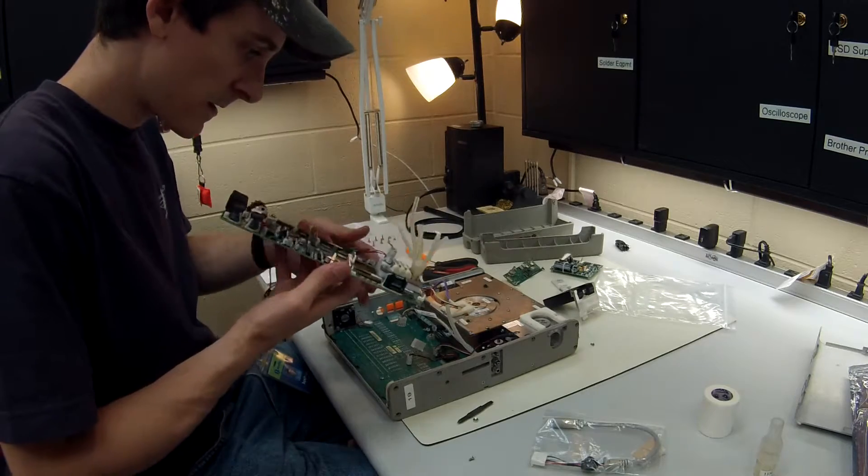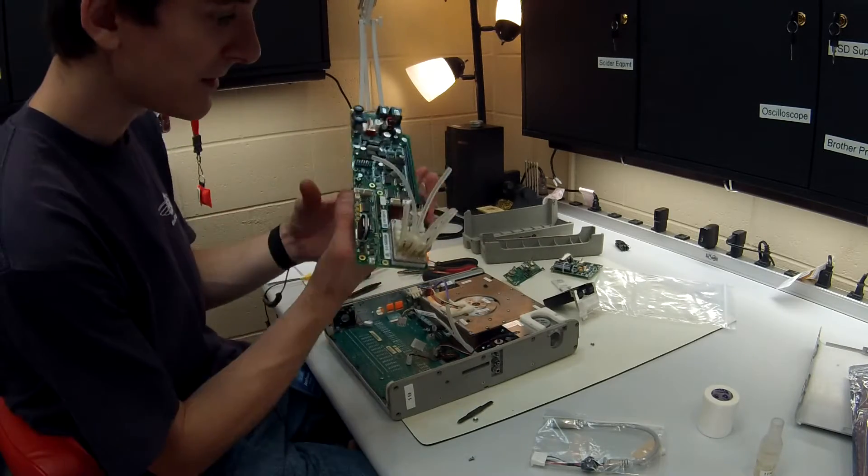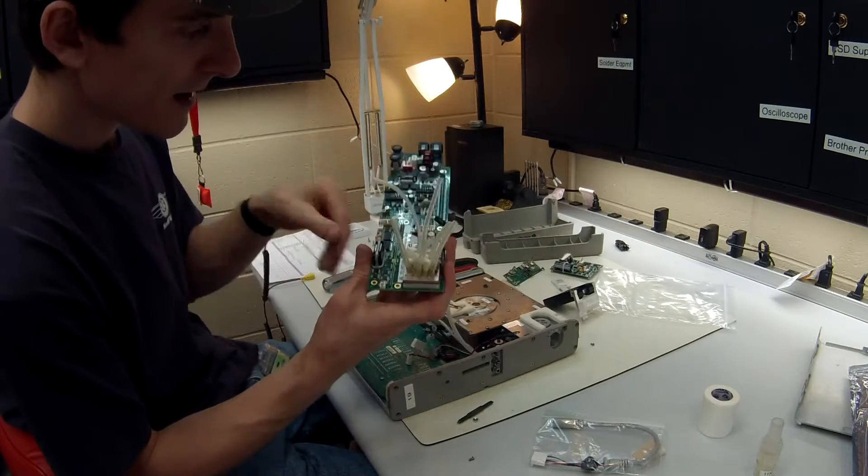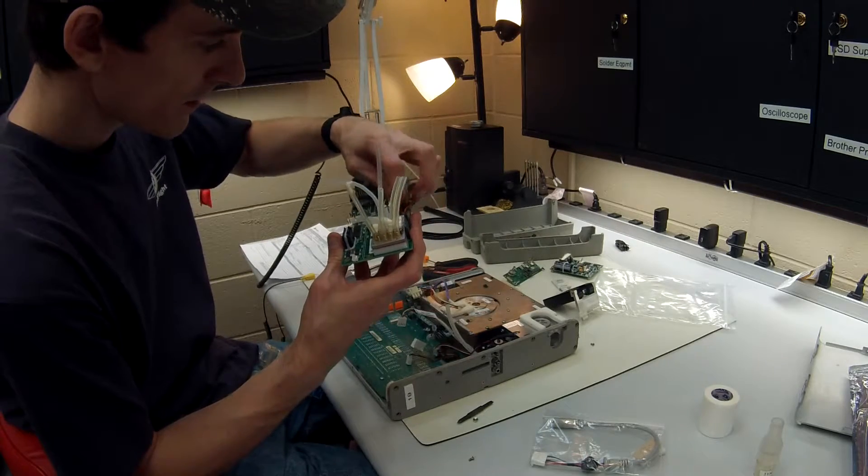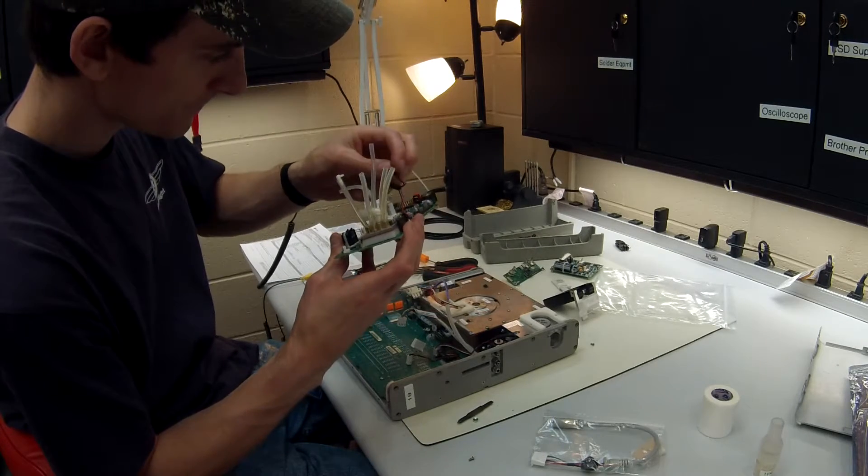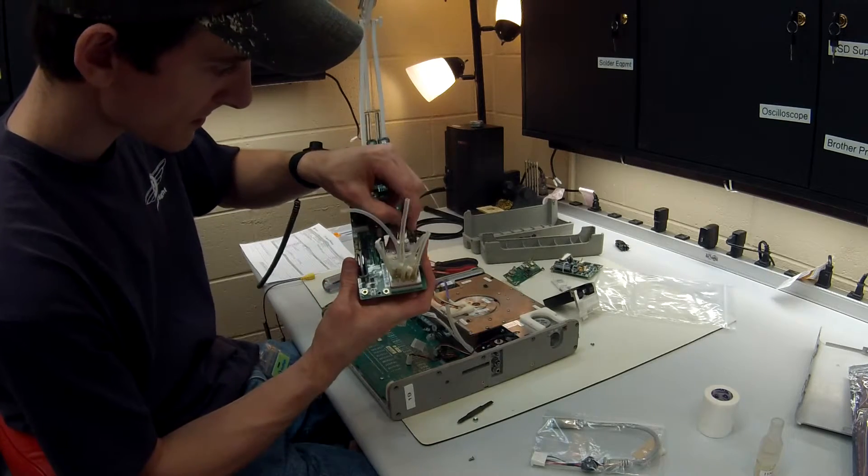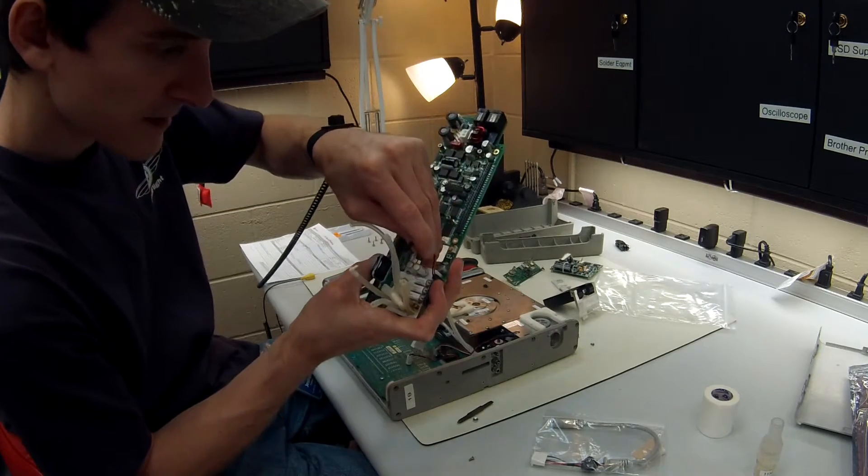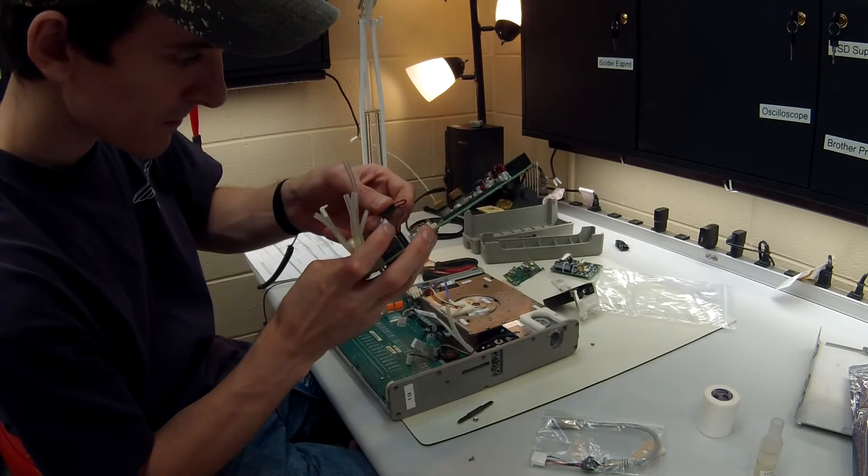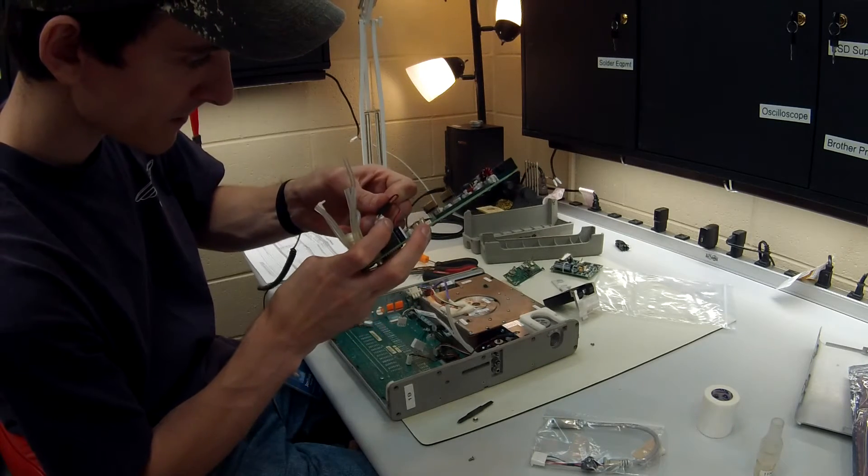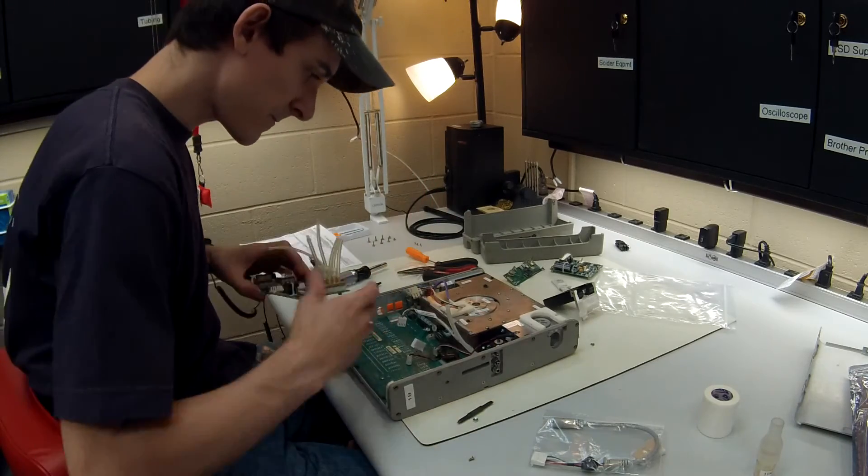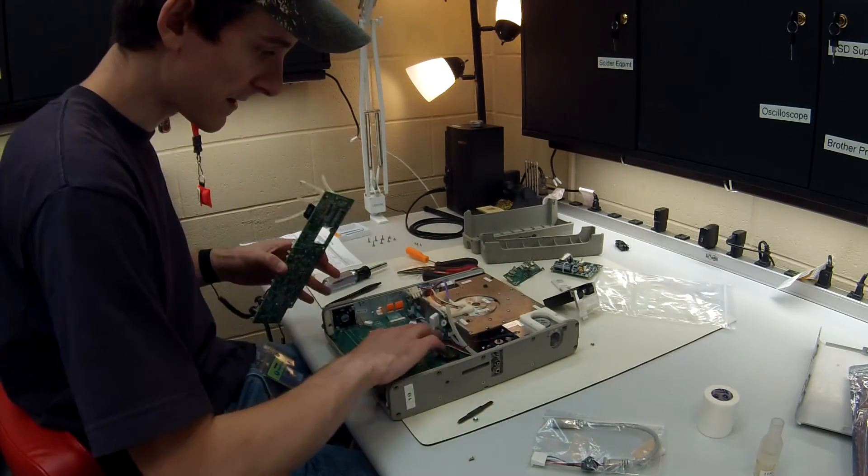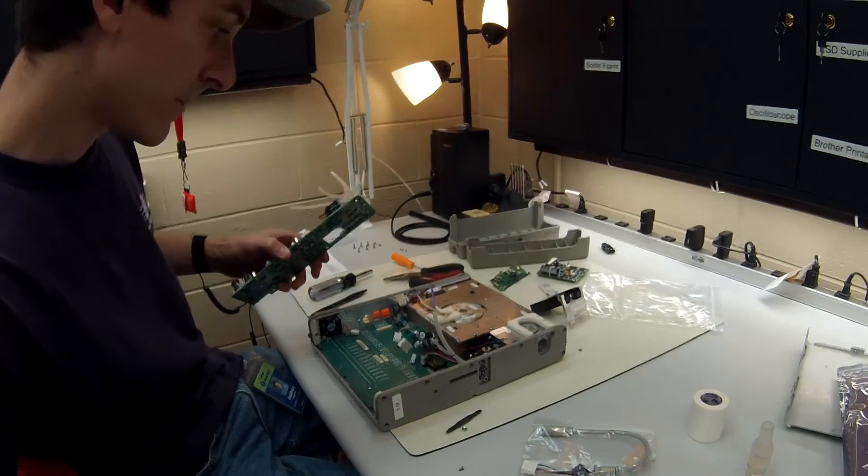Alright, that's back in. And these wires right here, they don't matter how they actually go on these two pieces. We're just going to slip them on, doesn't matter what way they go, just like that. Now when we actually get this back in, you're going to want to kind of angle it a little bit.